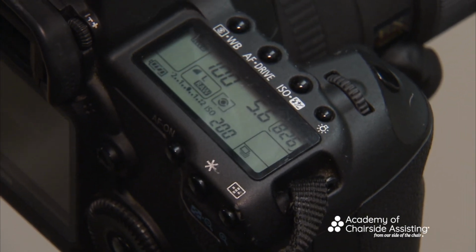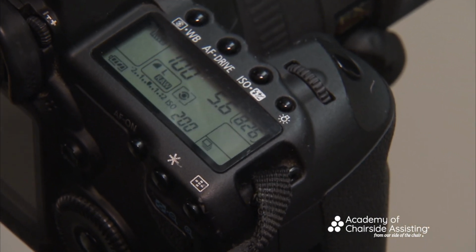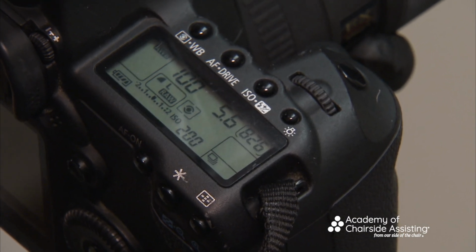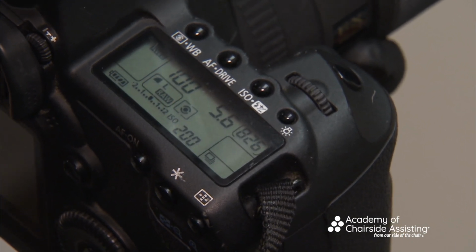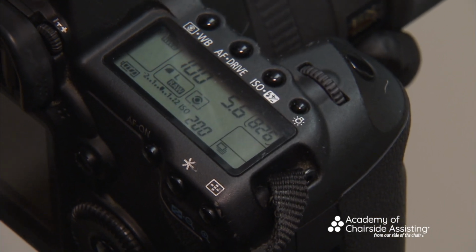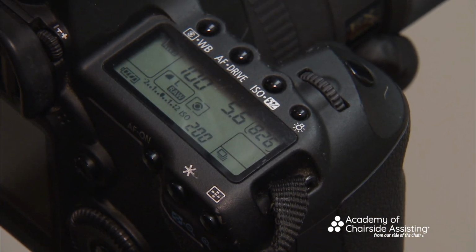Again, this is where you're going to take the photos, talk with your doctor about it, ask them which one they like, and decide and keep it there. So you always have two f-stops, and that's it. You don't want to have a whole bunch of numbers, and it leads to, again, consistency.